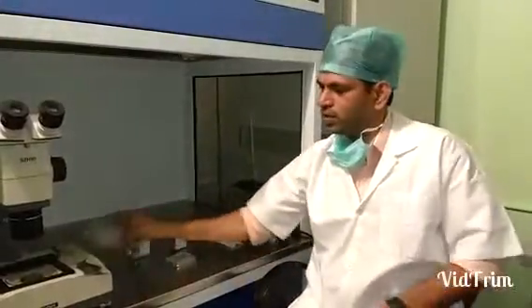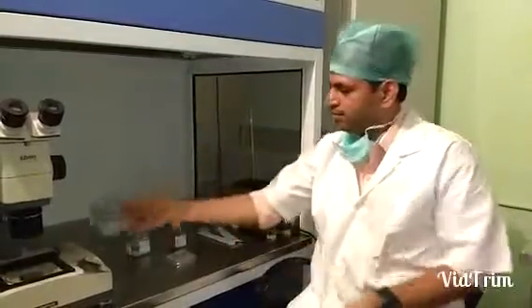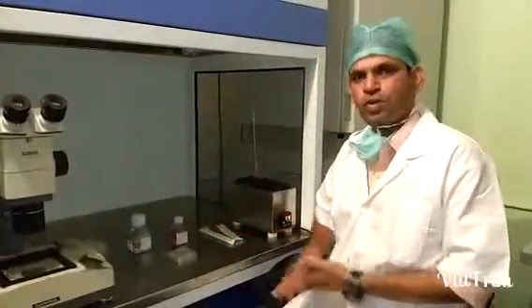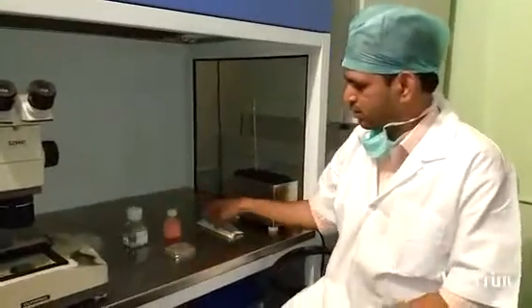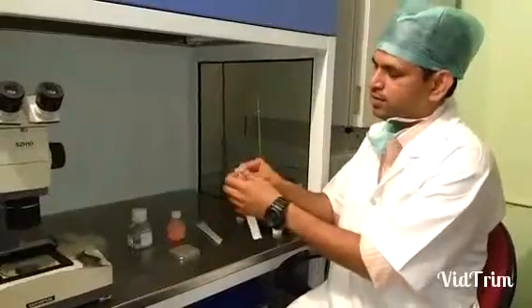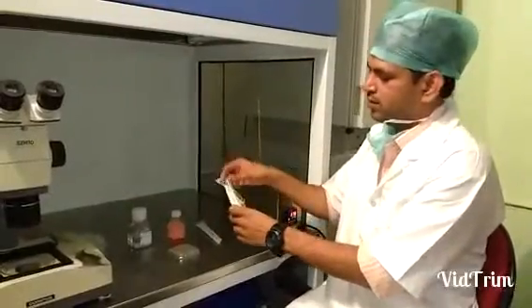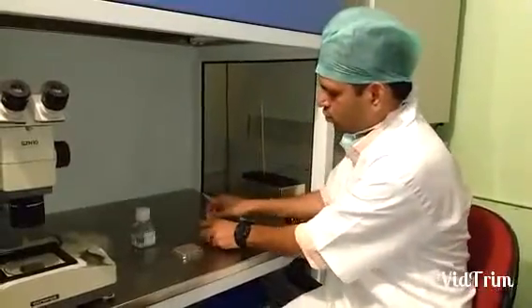The cultured dishes usually come in sterile packing. Now I am going to show you how we prepare the dishes. That's the culture media there. This is a sterile pipette. We usually put about 0.5 to 1 ml in each well.